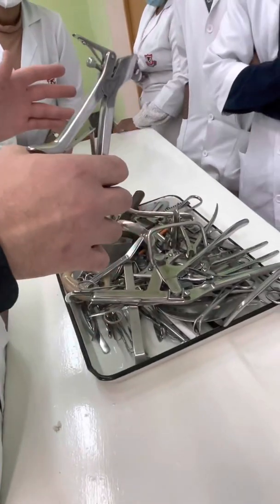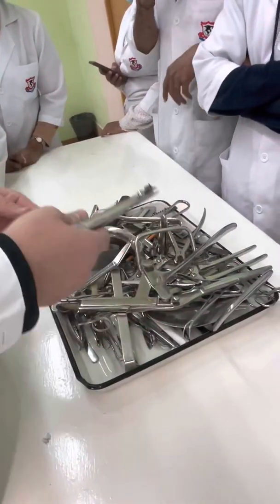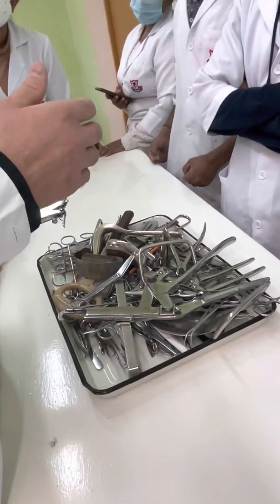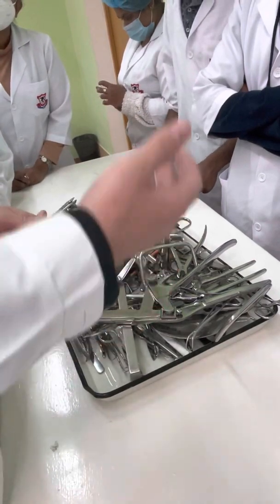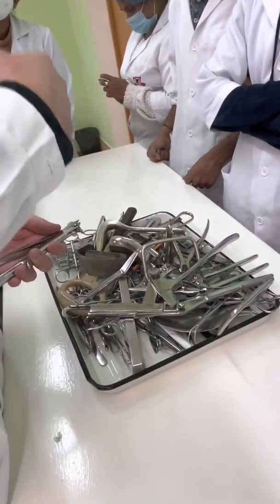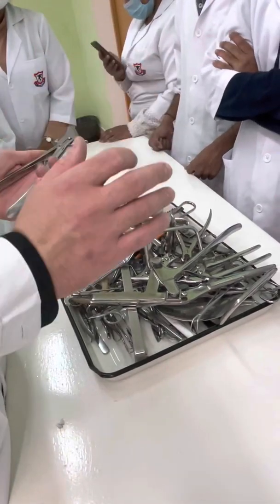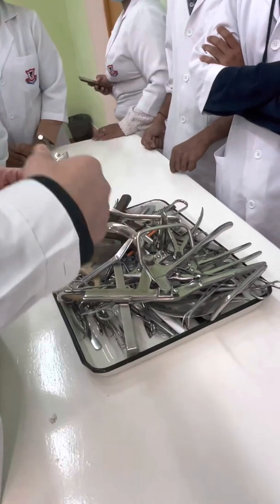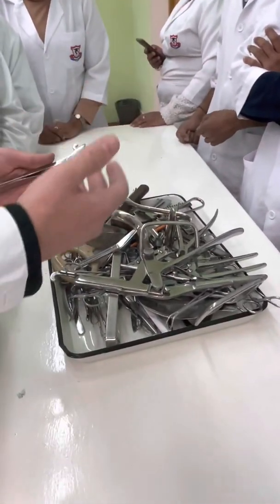Instruments in this box. We will use same box or this one box. First, you should know the classification of instrument. This means whether it is a special instrument or general surgical instrument, and its full name. If the name describes the function, of course, it's enough. If necessary, you should explain what the function is or during which operation we can use it.